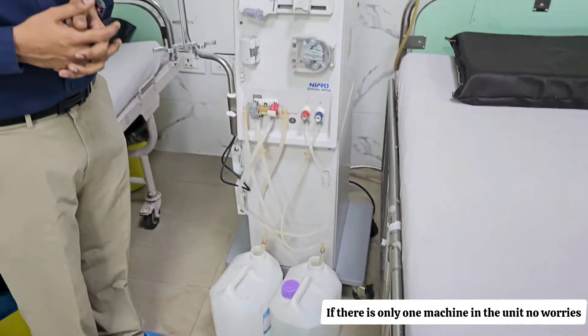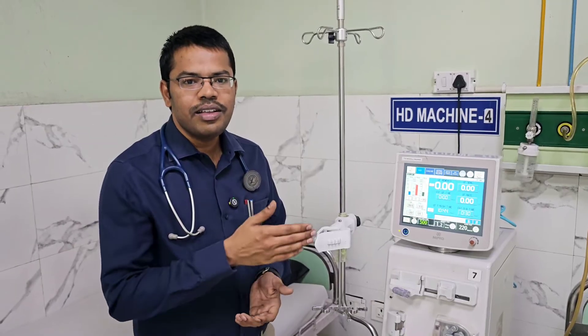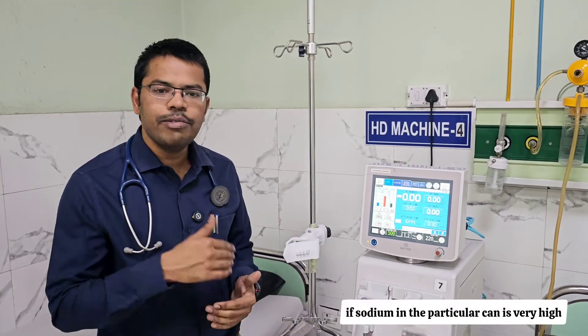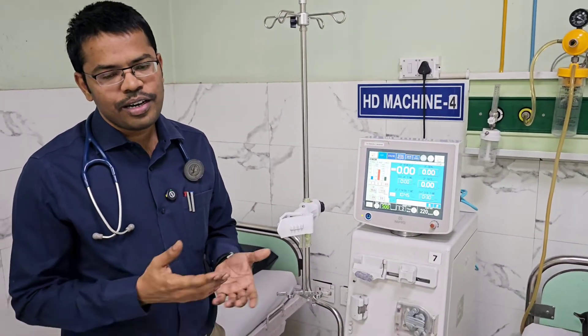Another common problem: what if a can gets empty? If there is only one machine in the unit, no worries — but if there are 15 to 20 machines, every two hours one or another can will be empty while a patient is on hemodialysis. Since we are handling a critical life-saving process, there should be no mistakes. Similar to a flight, there will be checkpoints everywhere. For example, if sodium in a can is very high, it will come in direct contact with the patient's blood and cause severe hypernatremia.